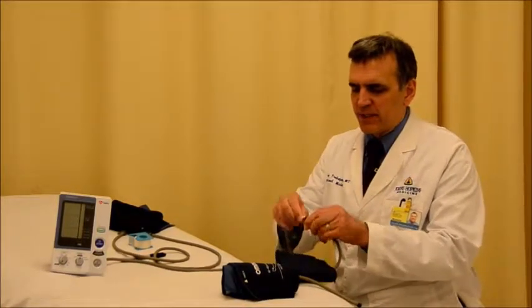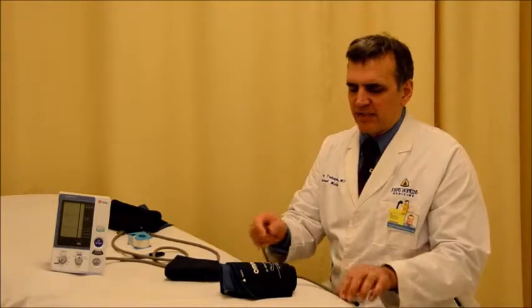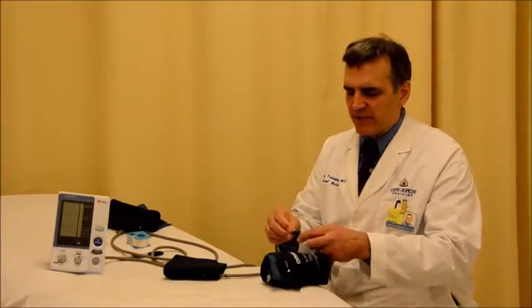This allows you to interchange the cuffs and each cuff has only a short piece of tubing attached to it.